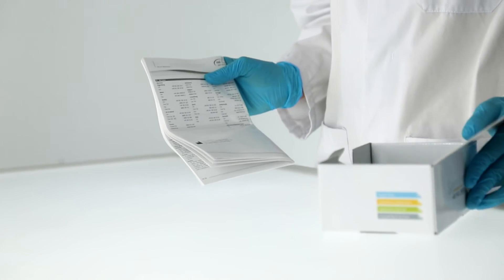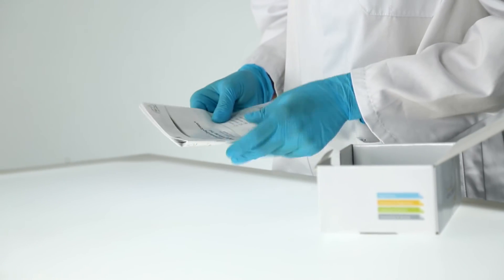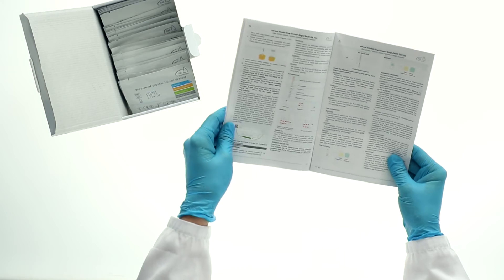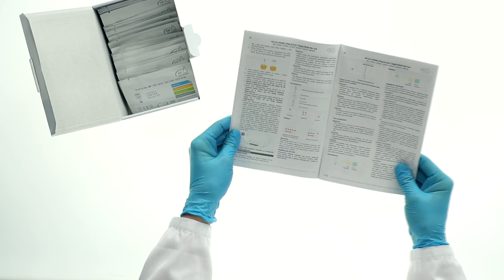All Nahl von Minden drug screen rapid tests are based on the same test principle. Always start by reading the instructions carefully.